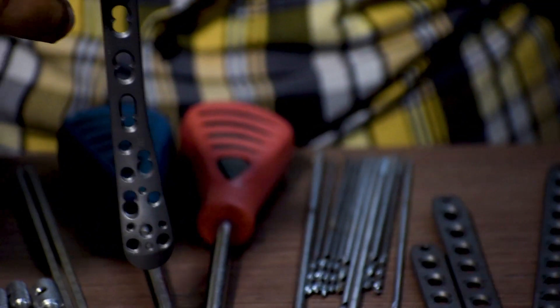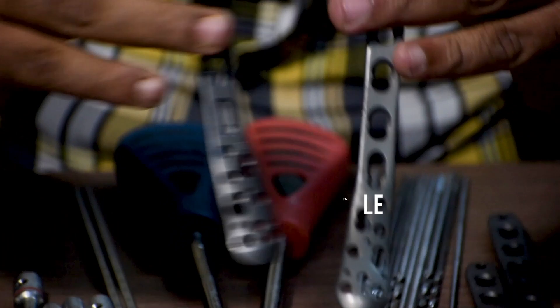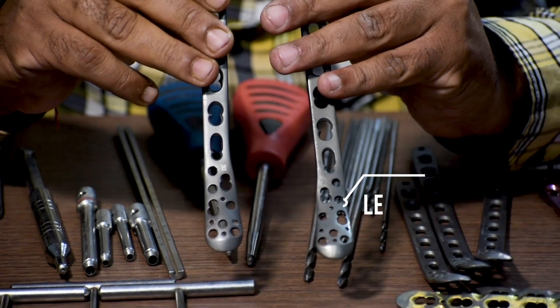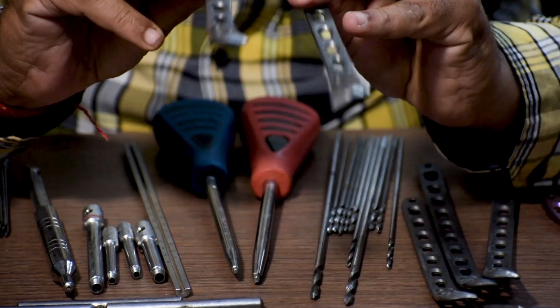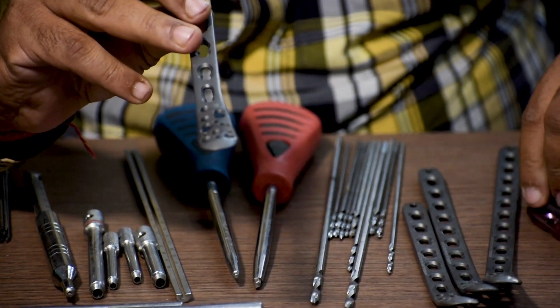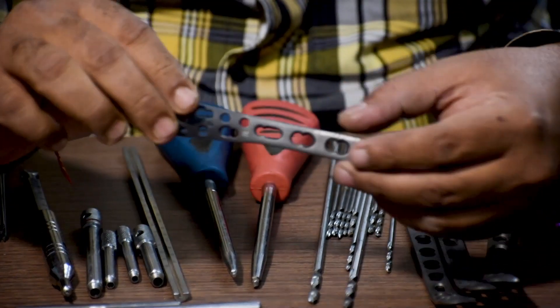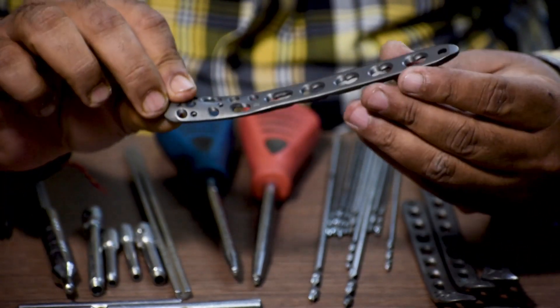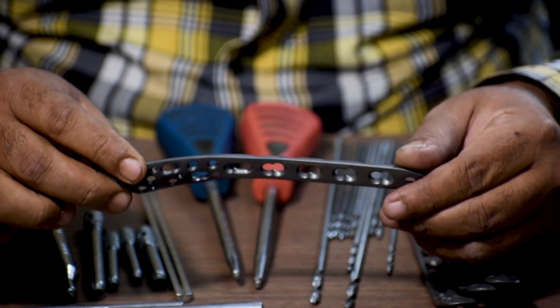This one right here is a right side plate and this one is the left side plate. Right or left will be mentioned on the plate. Let's take into consideration the right side plate. In order to fix a distal tibia medial locking plate, you will require a lot of instruments — we are going to discuss each one of them.